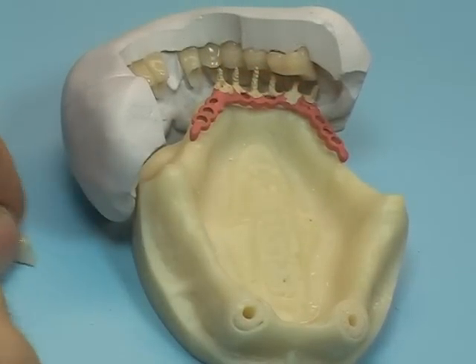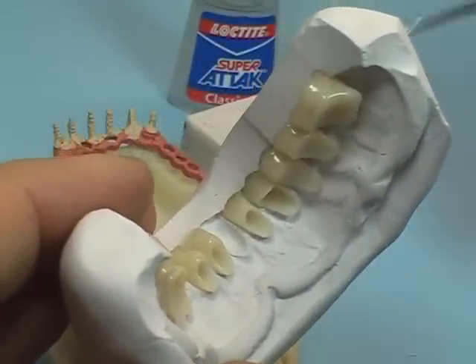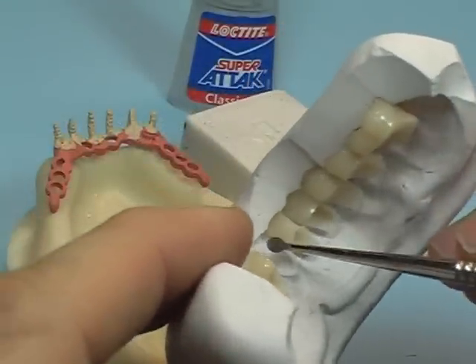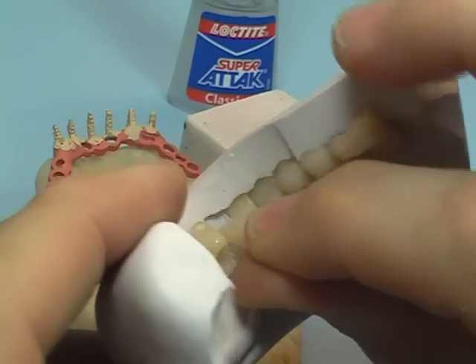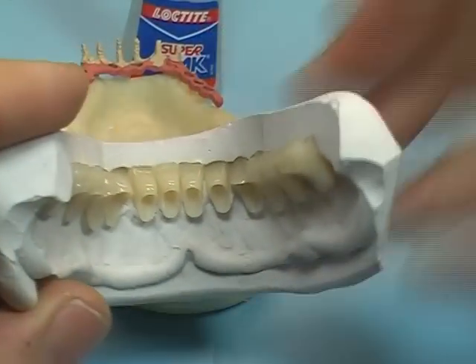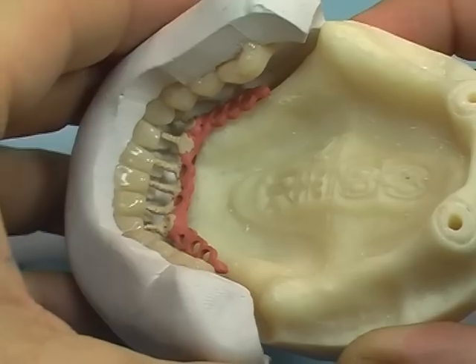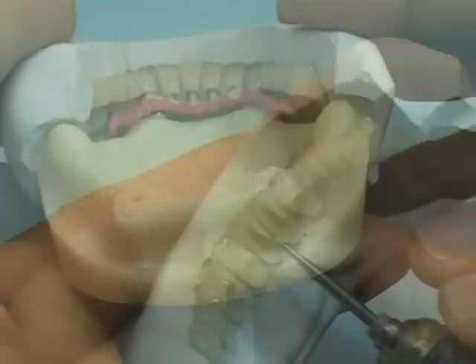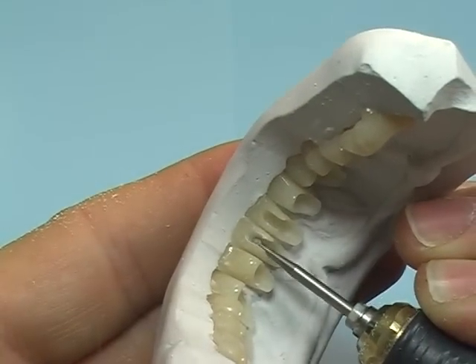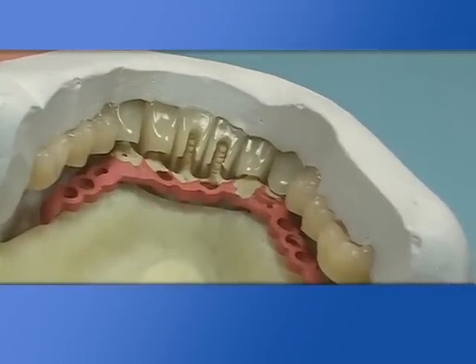It can be useful to secure teeth to the mask by gluing using superglue. If reinforcement pins have been carefully positioned, it will be simple to fit each single tooth. If any hardship occurs, it will be necessary to refine the tooth and reshape it with resin.